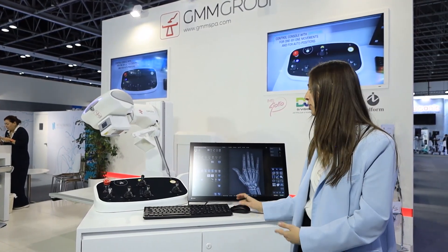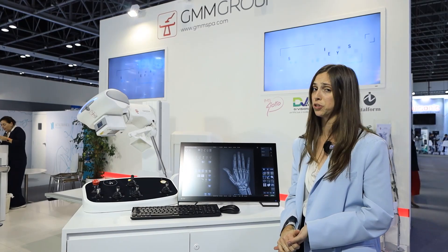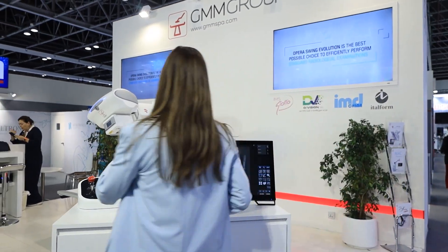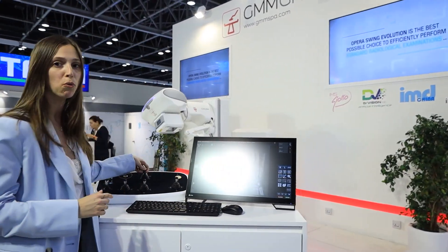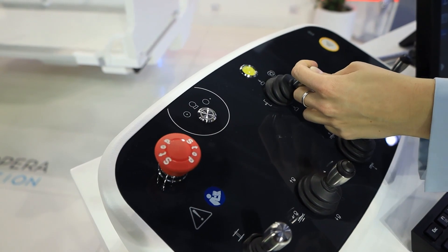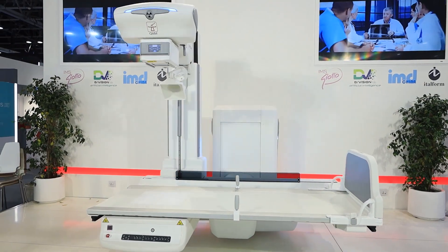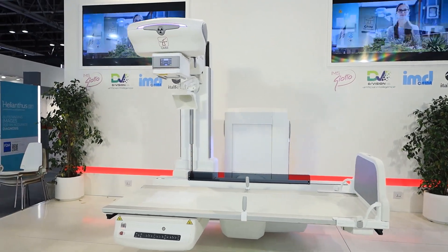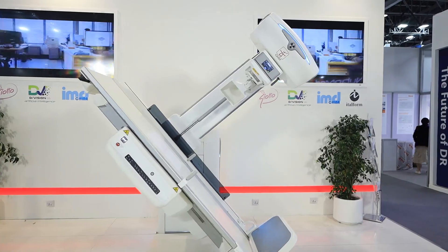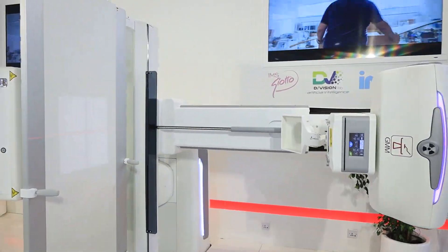For example, in this way I can select an auto position for the table. Simply by moving one joystick I'm able to move the table as well, making it very easy for the operator to move the system without having to manage the single movements themselves.